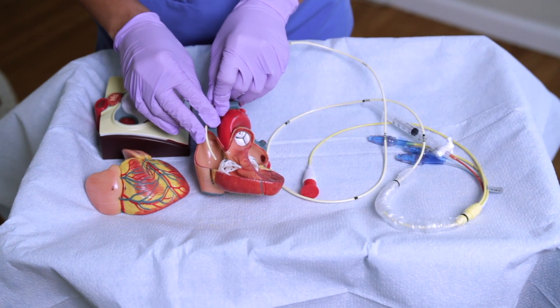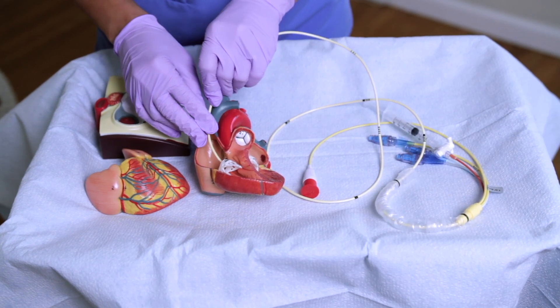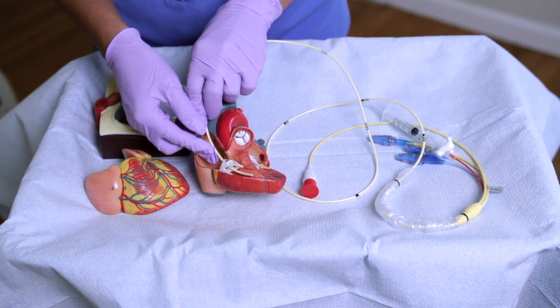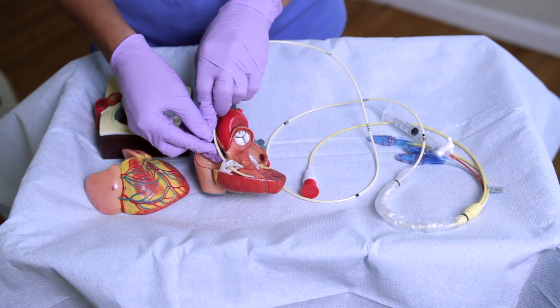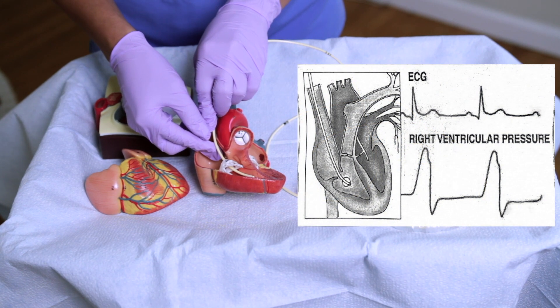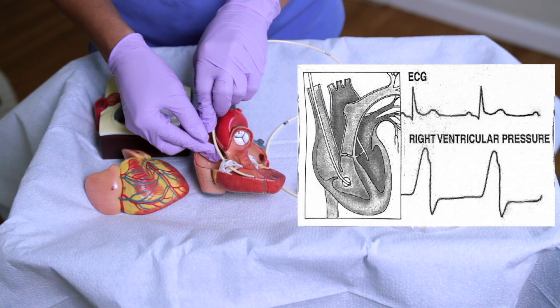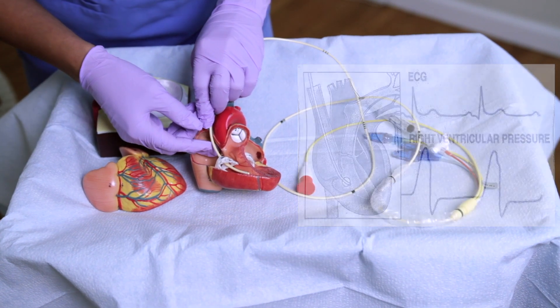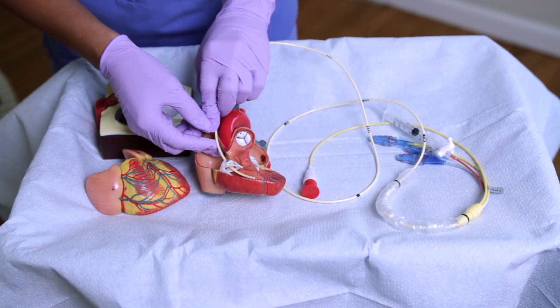As it continues to advance through the tricuspid valve into the right ventricle, you're going to see a very specific waveform. It's going to have a sharp systolic upstroke and a lower diastolic dip.